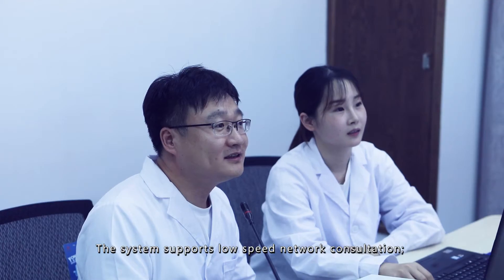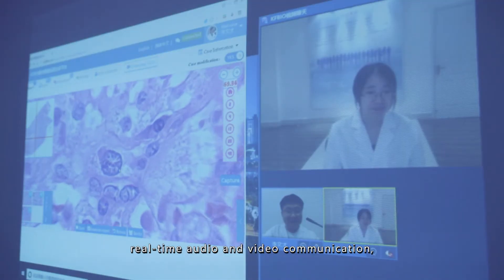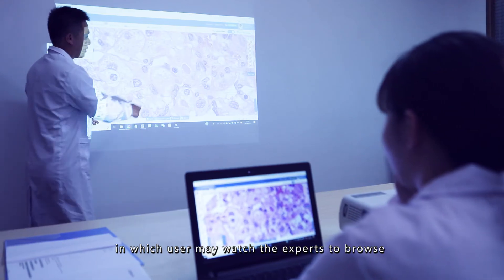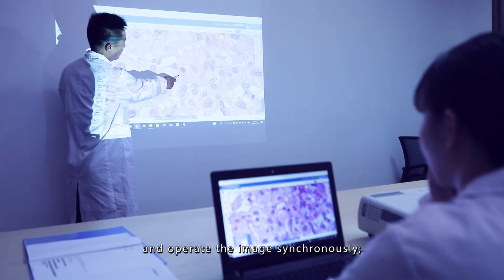The system supports low-speed network consultation, real-time audio, and video communication, in which users may watch the experts to browse and operate the image synchronously.